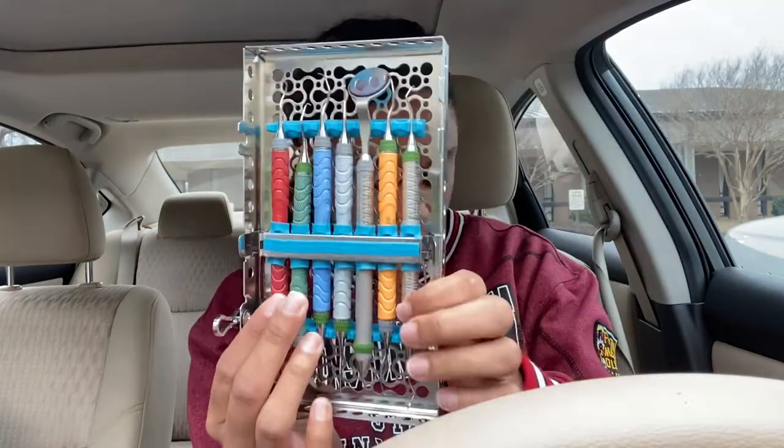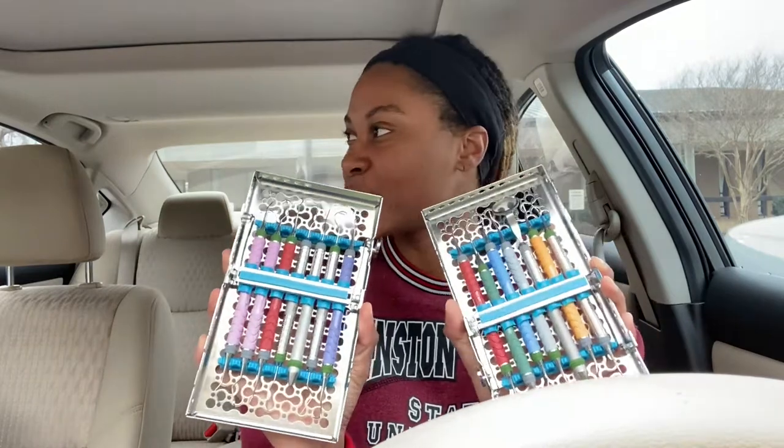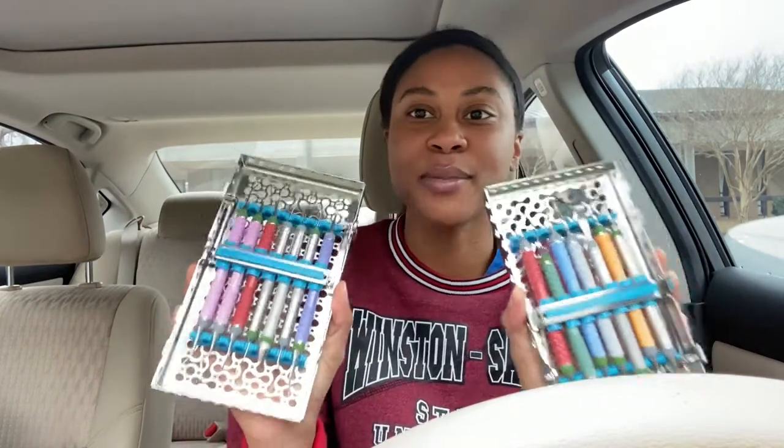I'm not sure what this one is — I don't know if I even work with this. Oh, this is my SC 13-14. So this is my summer kit that I never showed y'all.